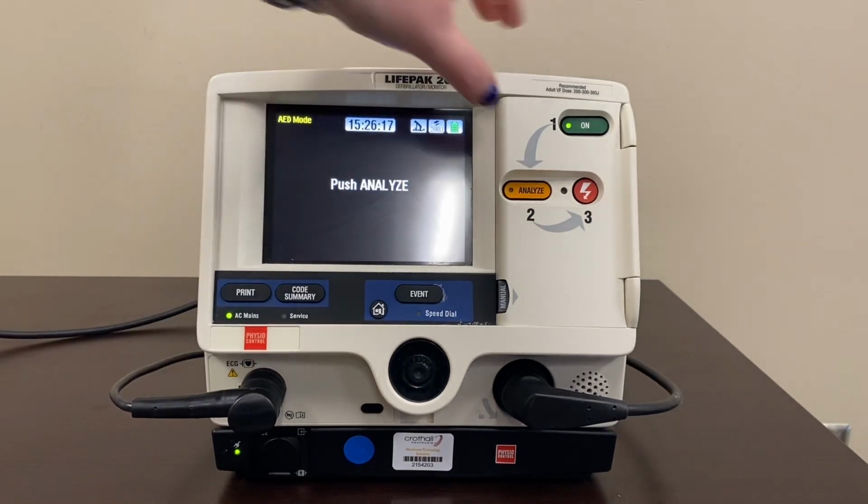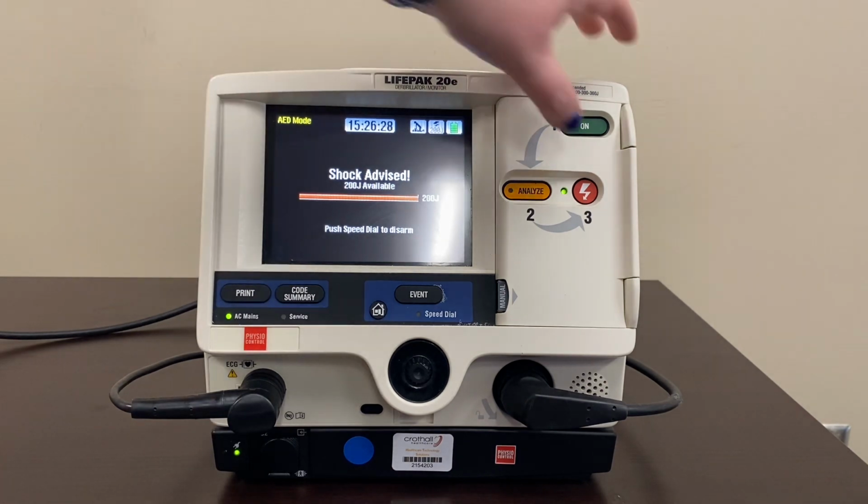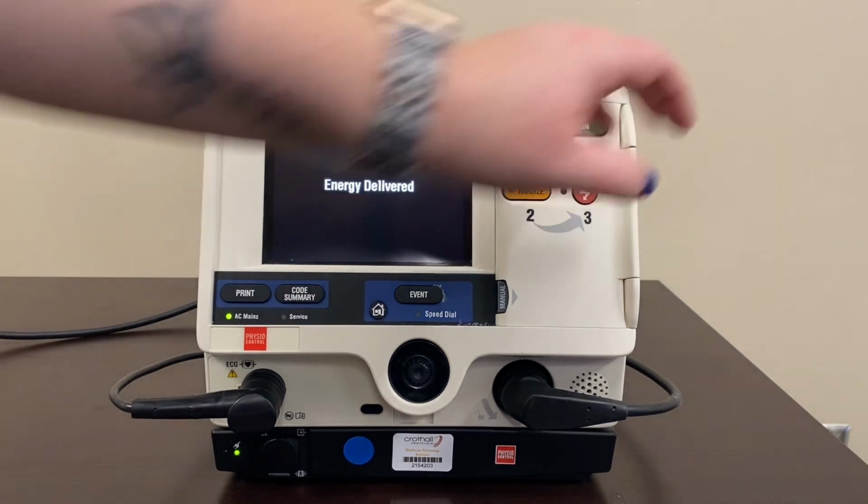Analyze. Analyzing now. Stand clear. Shock advised. Stand clear. Push to shock.